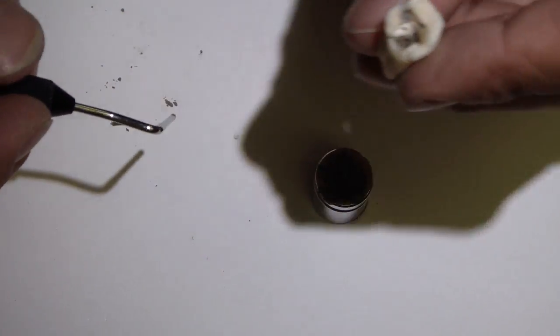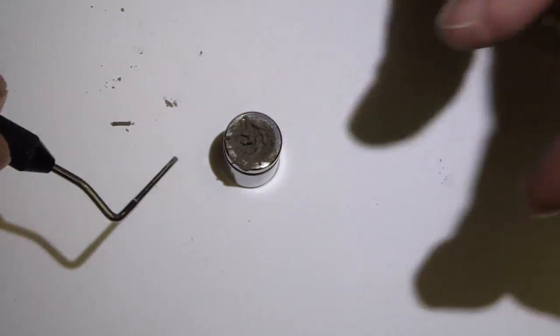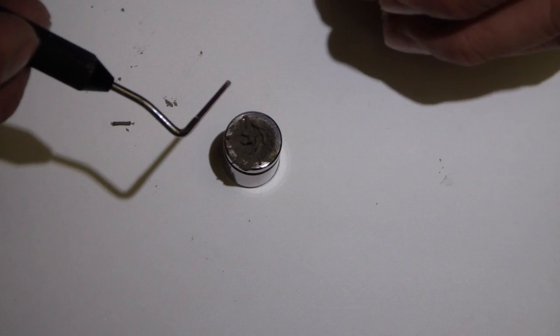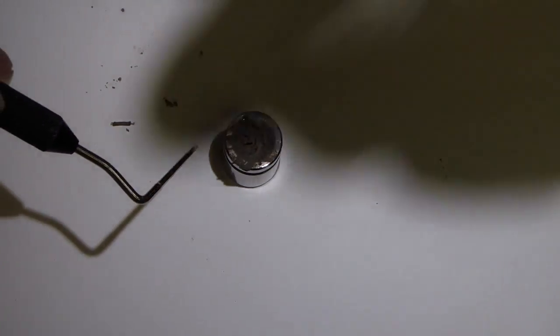I hope that helps sort of taking a look at mixing MTA, placing it in the MAP system, and then quickly placing it in my homemade furcal perforation. Cheers.